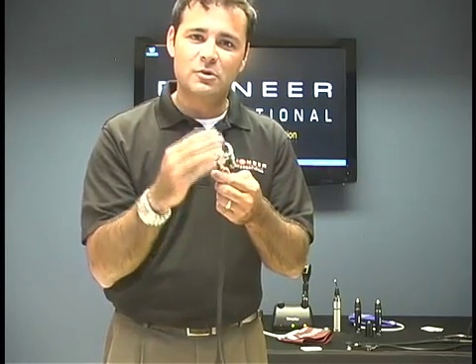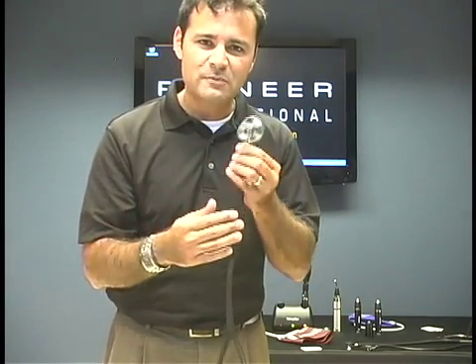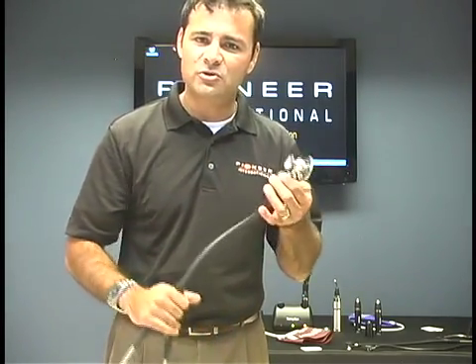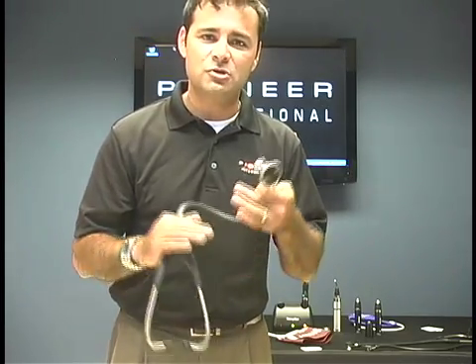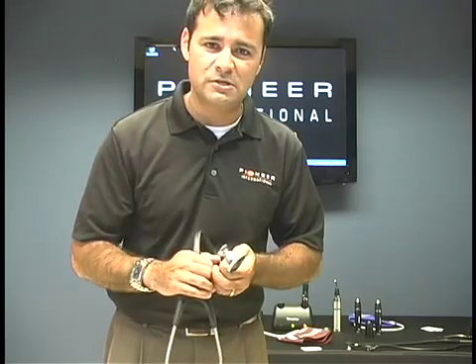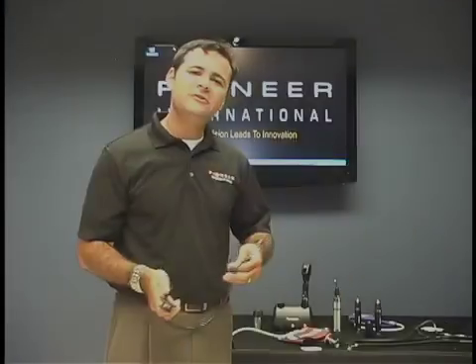You want to make sure you've got your warranty and everything taken care of at the school. So make sure when you're getting your stethoscope, your sphyg, or your blood pressure gauge, that it's something the school provides so you can get taken care of when it comes to a warranty issue. And you and I both know we'll beat the heck out of these things.